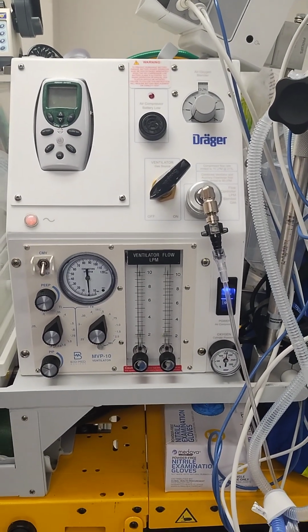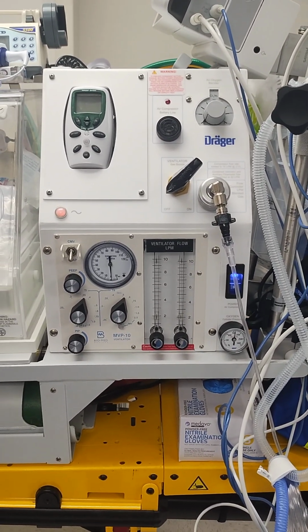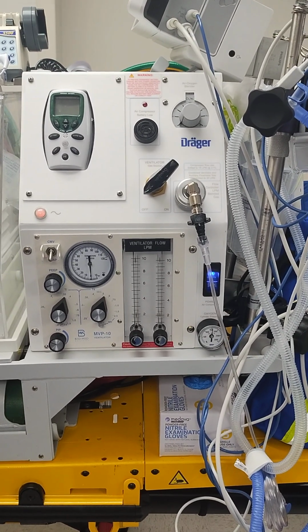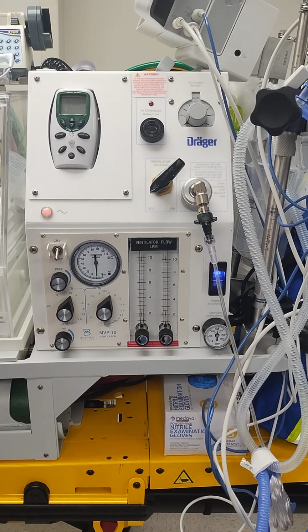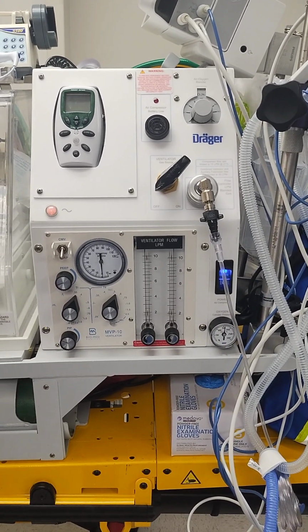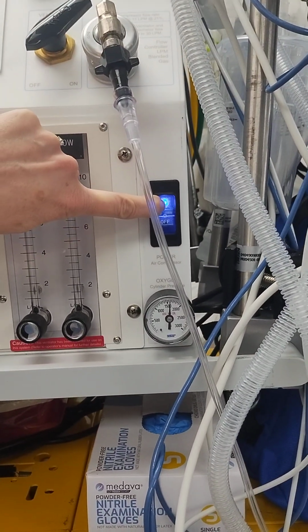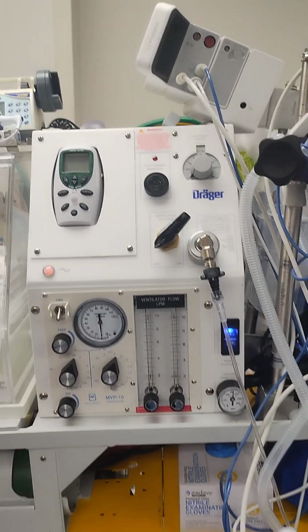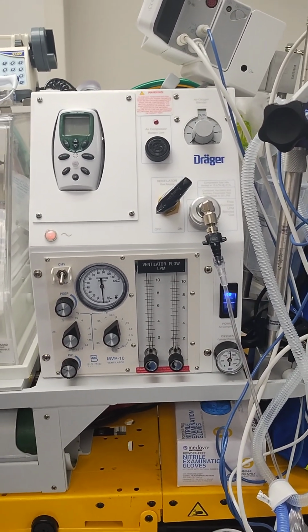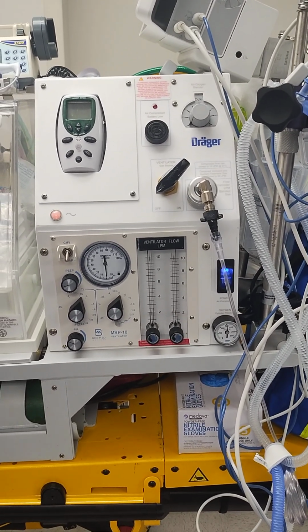When you are arriving at the facility, you can plug in your air and oxygen into their outlets at the referring facility. When you get ready to leave the facility, you're going to turn on your oxygen tanks and flip on your air compressor right here prior to disconnecting from the wall if you have a baby on the ventilator. So I just wanted to mention that before we go over how the ventilator functions.